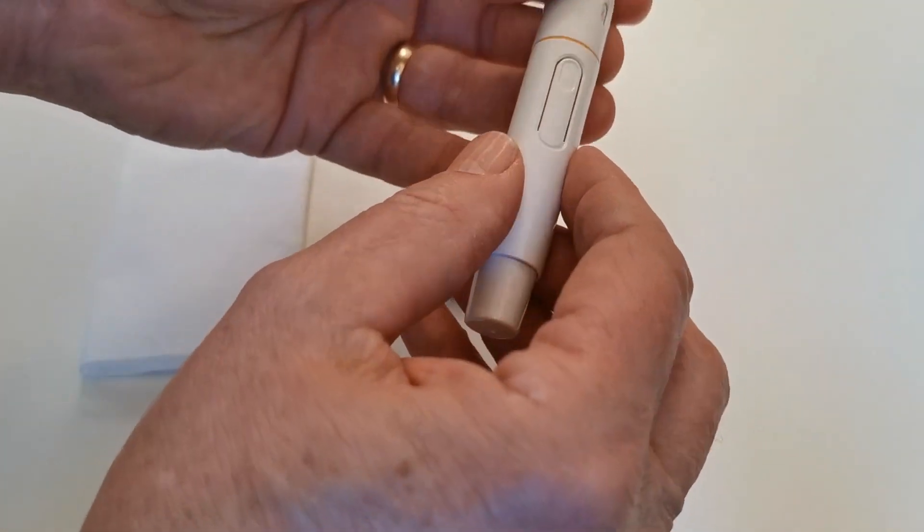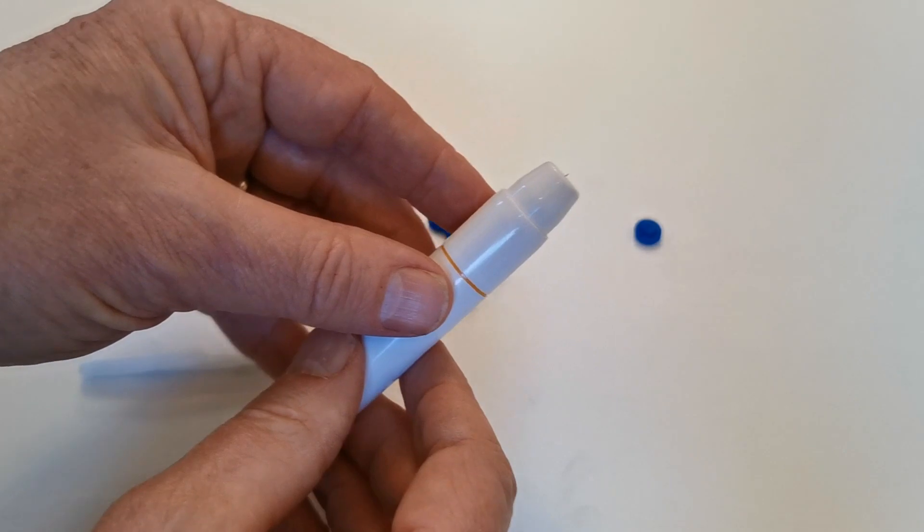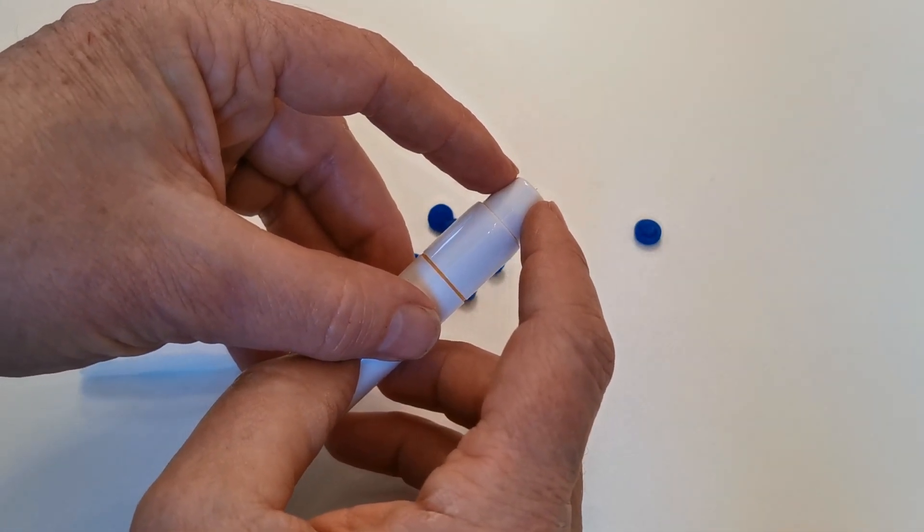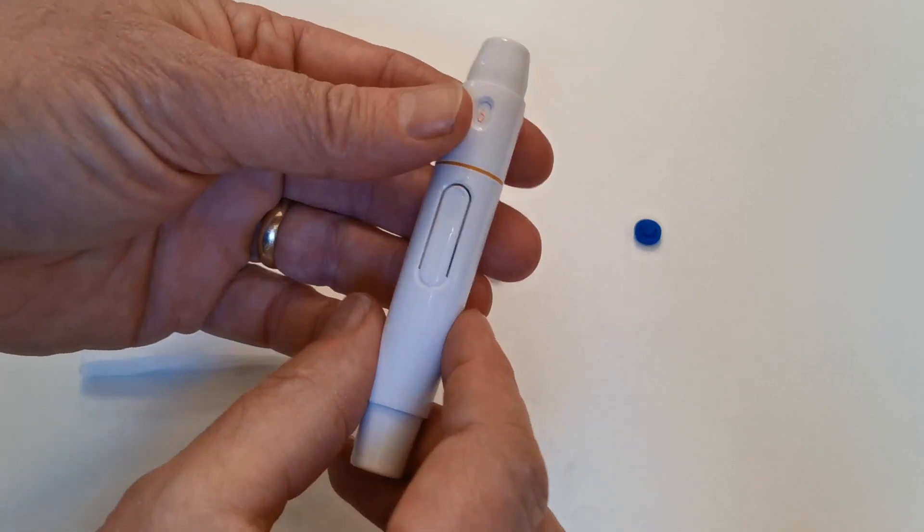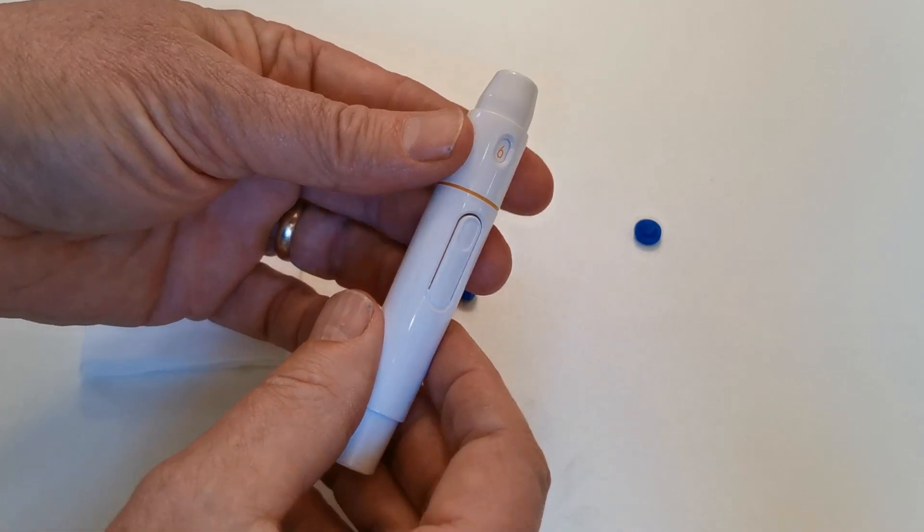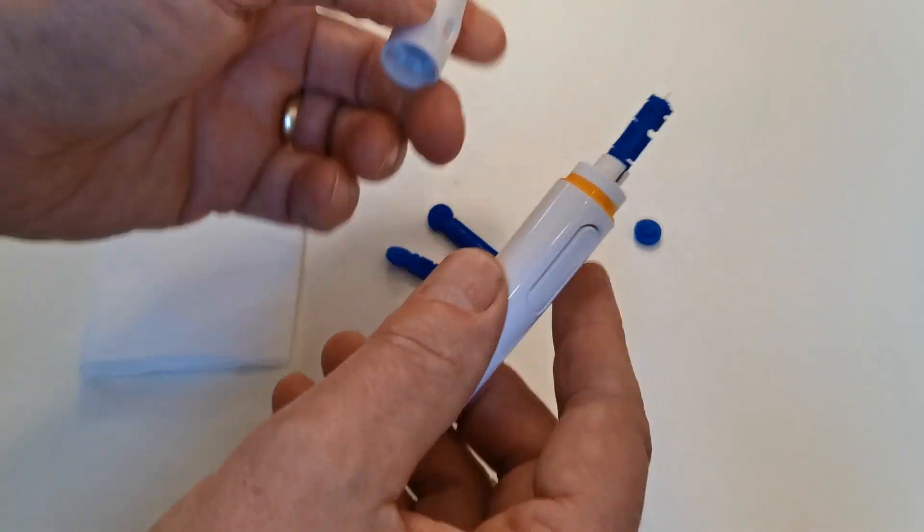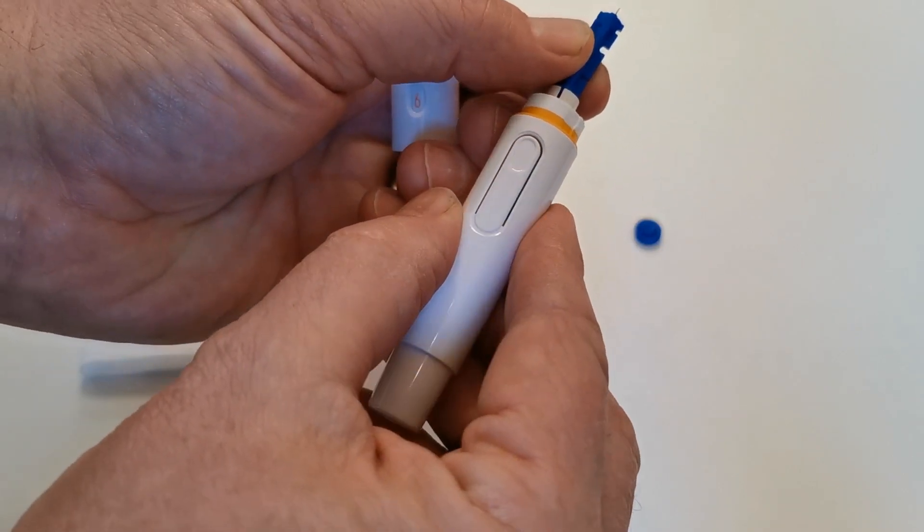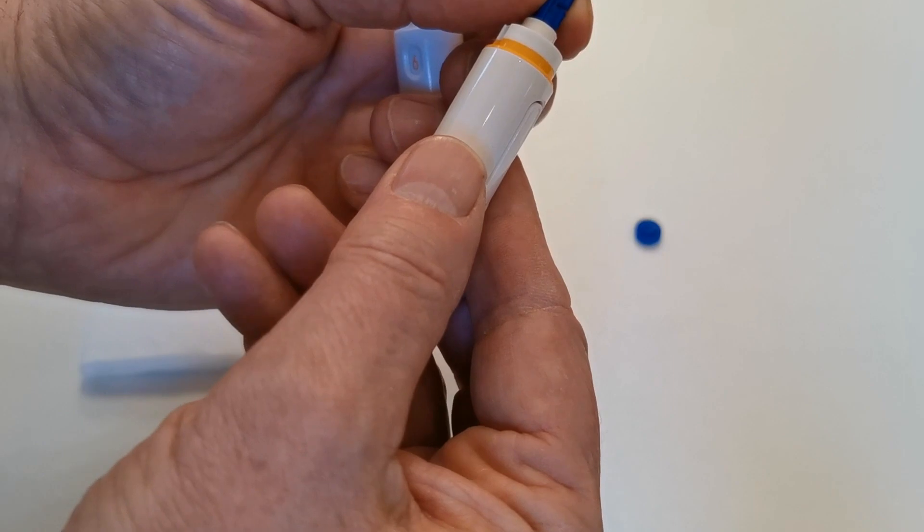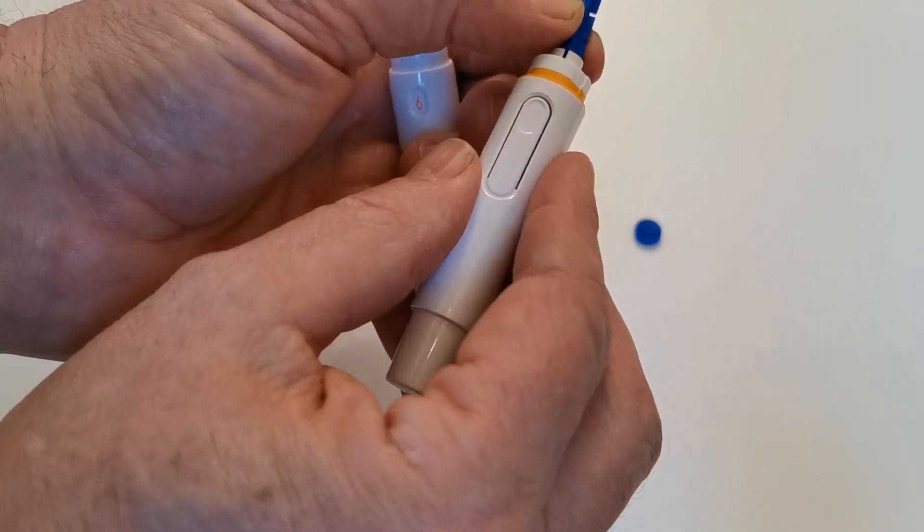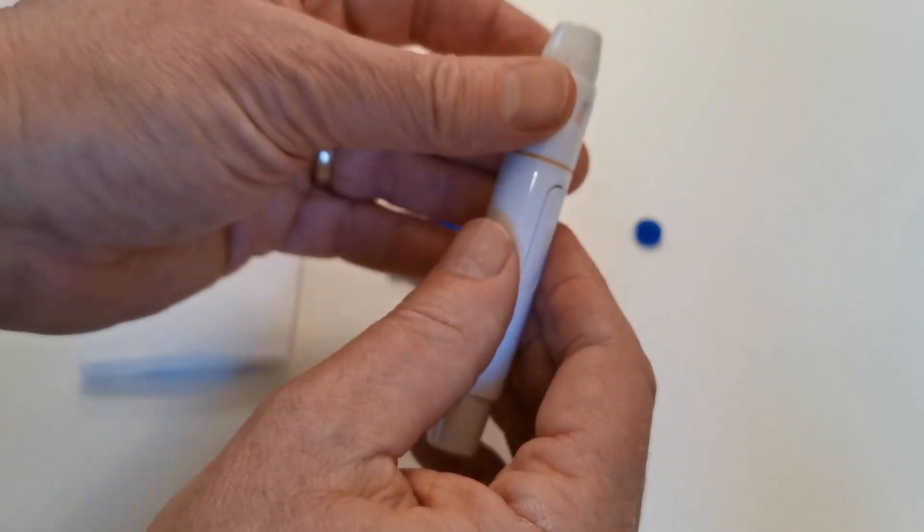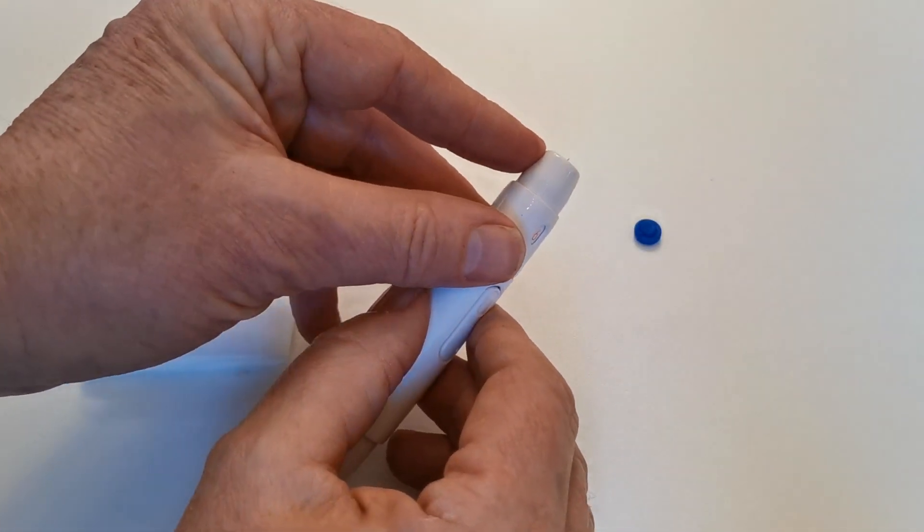Unscrew the cap to reveal the lance. Replace the cap and what you should be able to see is the lance sticking out, ideally about one to two mils. If it's not sticking out enough, remove the cap and slightly ease it up in the chamber. You've pushed it in too far, but it is critical that that lance is showing at the end. That's better positioned.